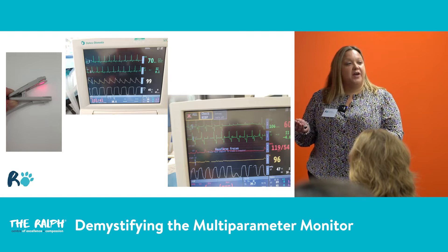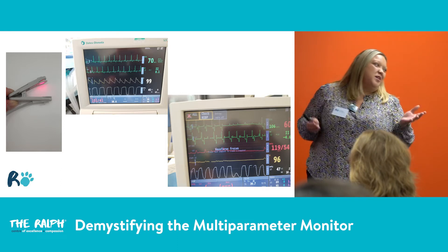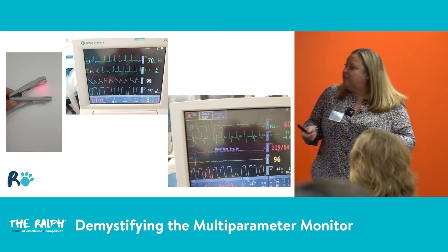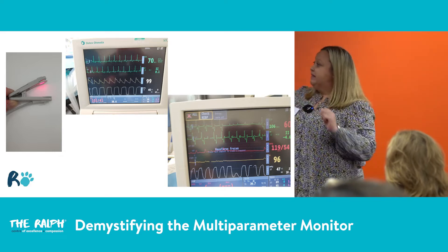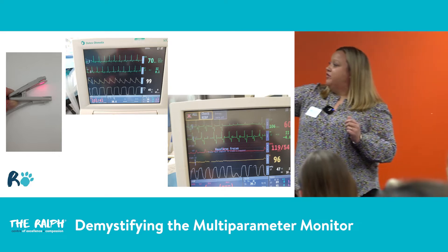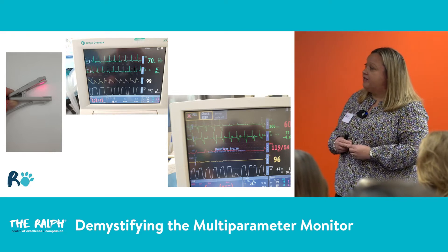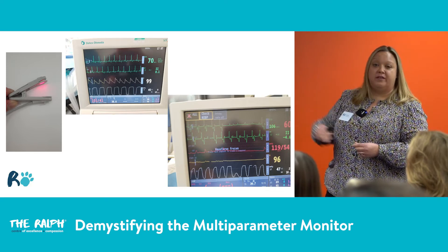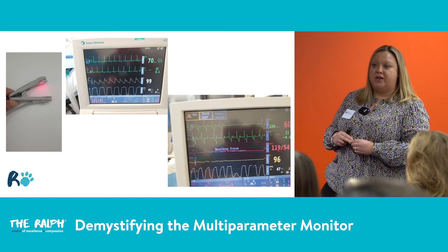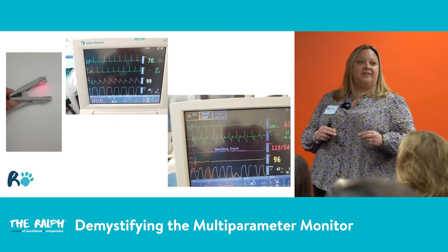If you don't have a nice pulse pleth to go with it, sometimes you're dubious as to whether you actually trust the number. This slide down here is actually super interesting — does anybody find that slide at the bottom a bit scary? Please say yes.